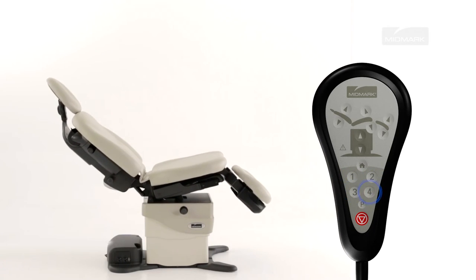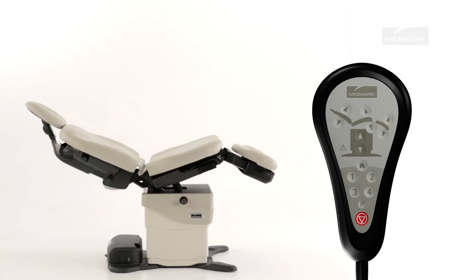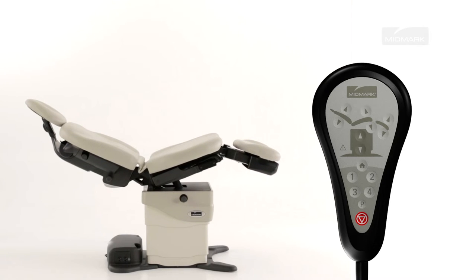Movement stops when the programmed position is reached, the active sensing technology is activated, or the stop button is pressed. The position buttons may be changed to function as press and release.